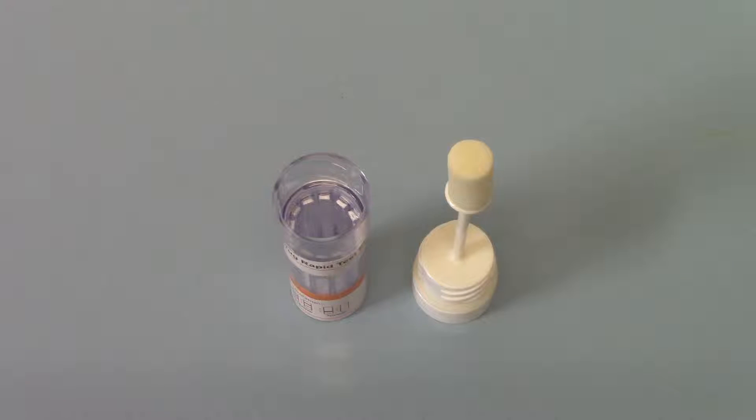Okay, welcome back to part 3 of this product demonstration for the DSD-812-7, which is the 11 drug plus alcohol saliva drug test kit.